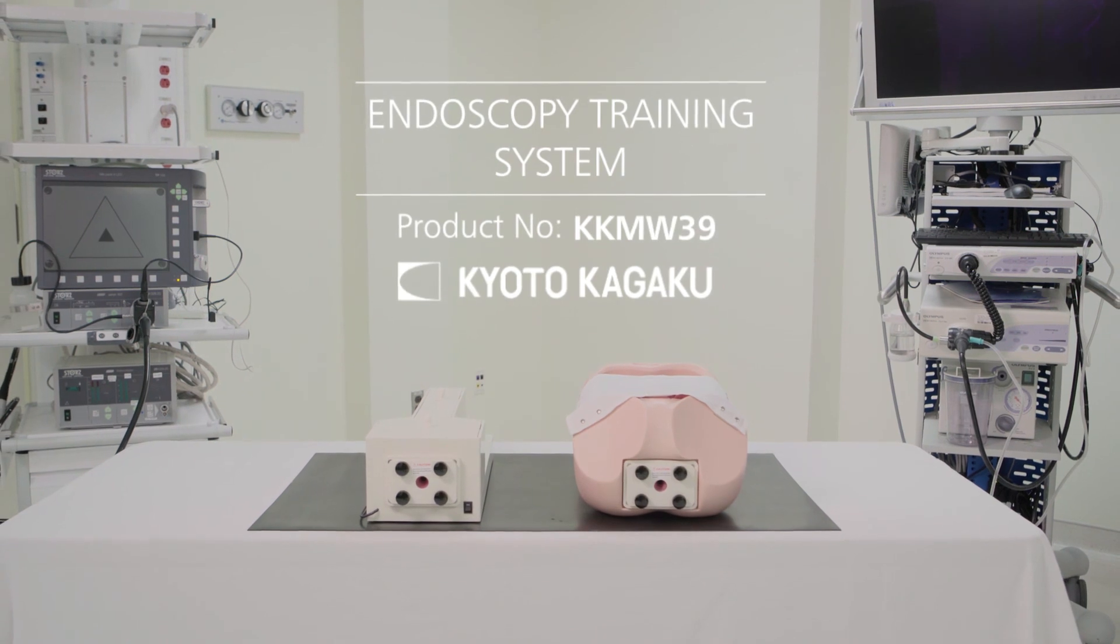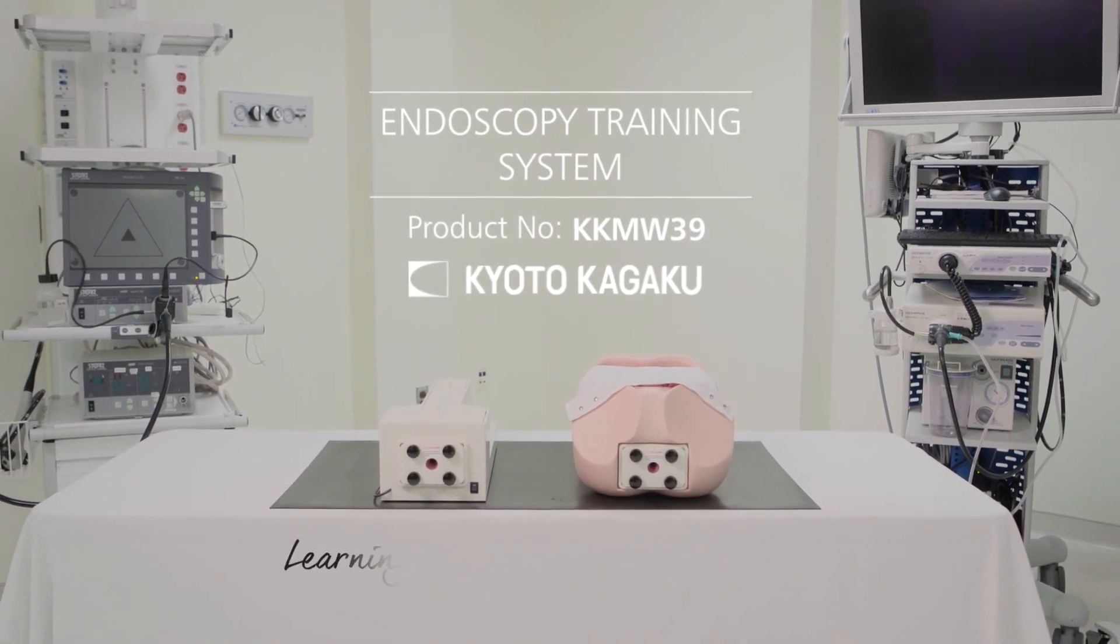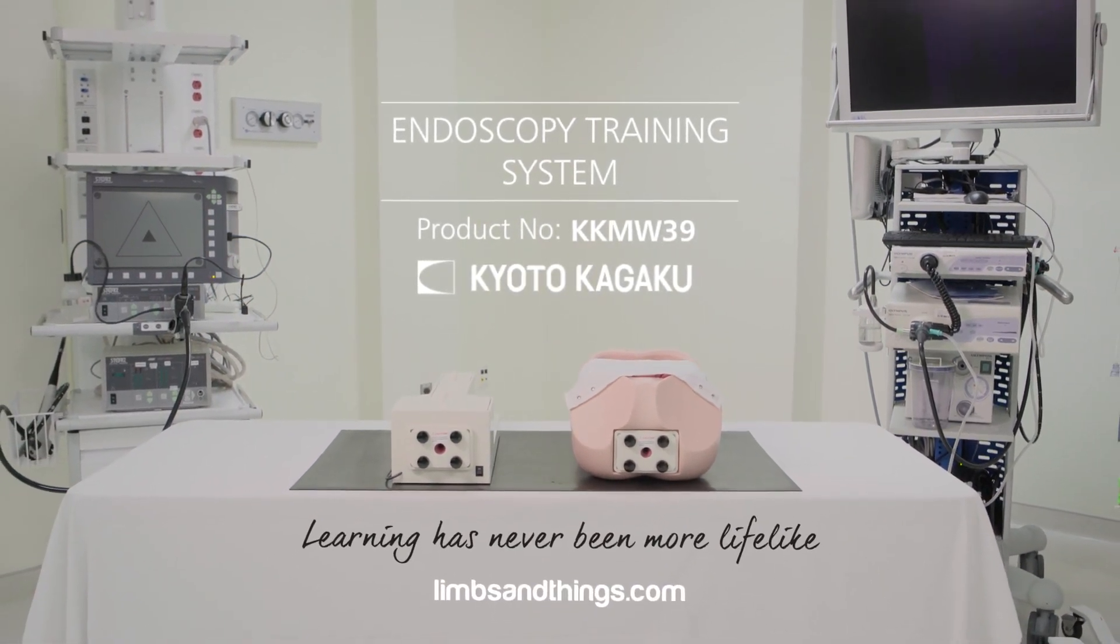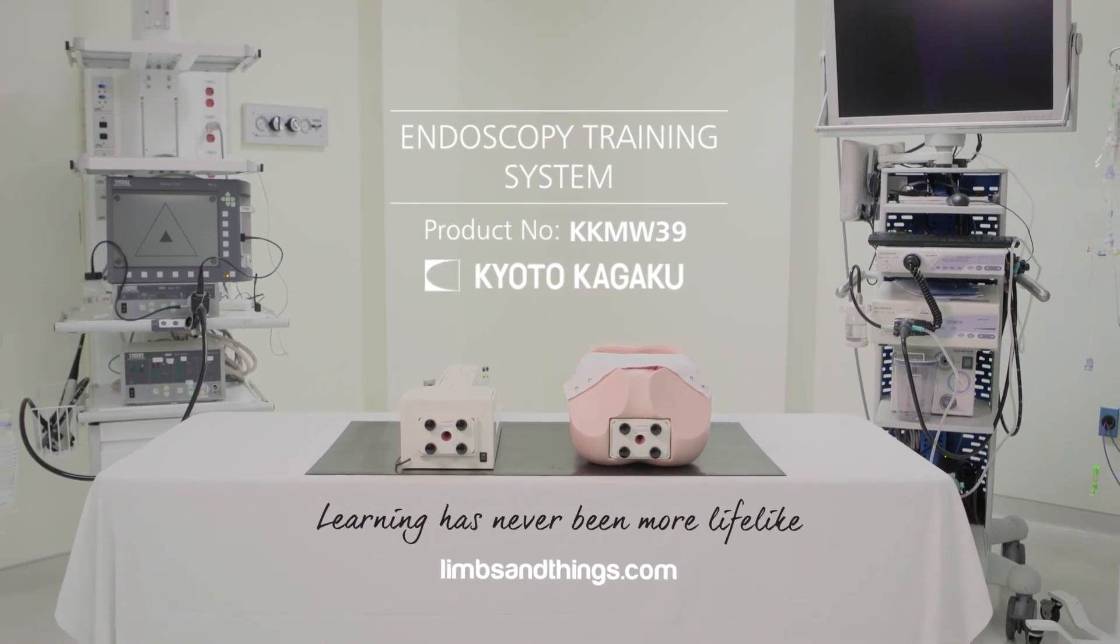Through deliberate practice, the trainee will develop the key skills required to achieve proficiency in flexible gastrointestinal endoscopy.